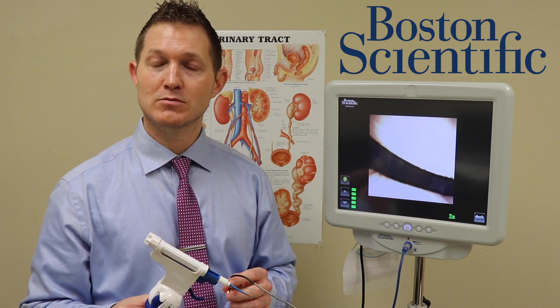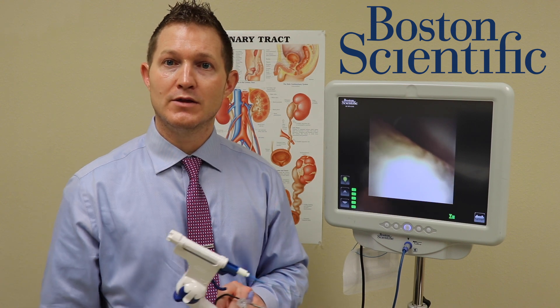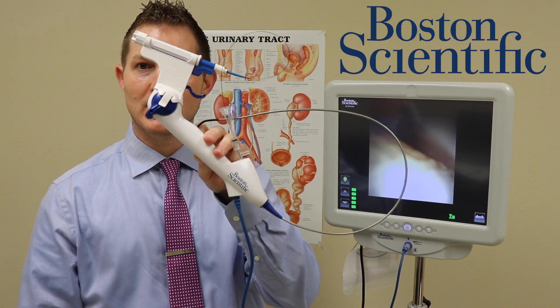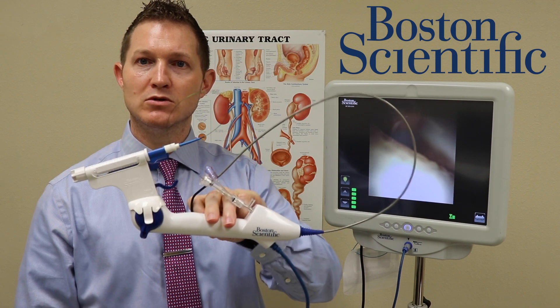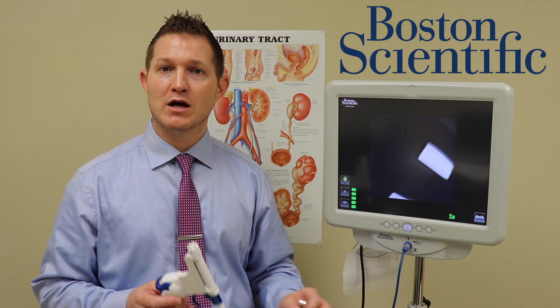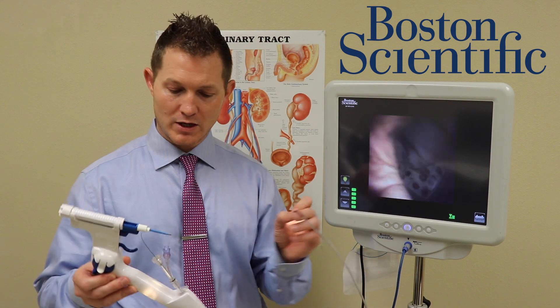Some of that may be in the processing by hospitals and systems — who knows for sure exactly — but thinking about safety for patients, the easiest way to be as safe as possible is to ask for the LithoVue device, ask for a single-use device that has never been used on anyone else. This will keep you infection-free, or at least keep you as low risk as possible for developing any types of infections. The LithoVue and Empower devices together represent that commitment to safety.